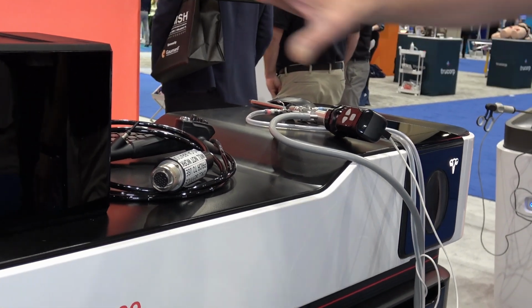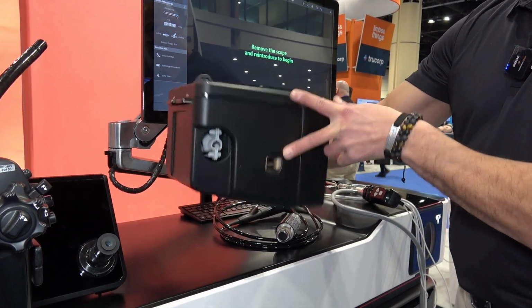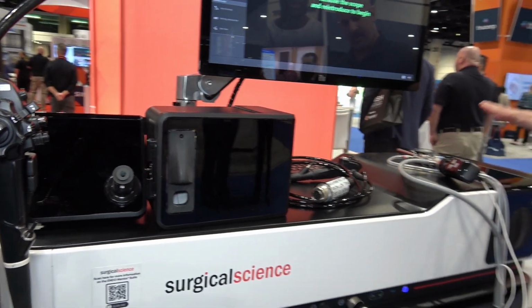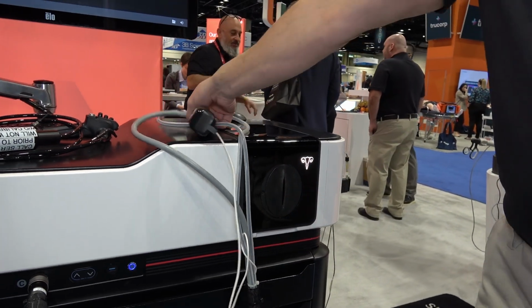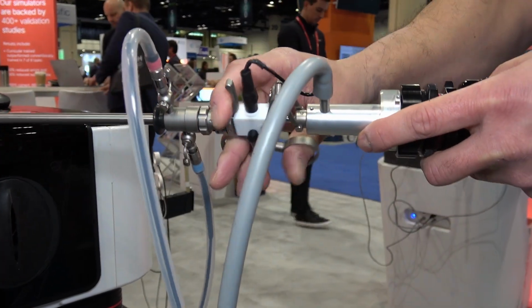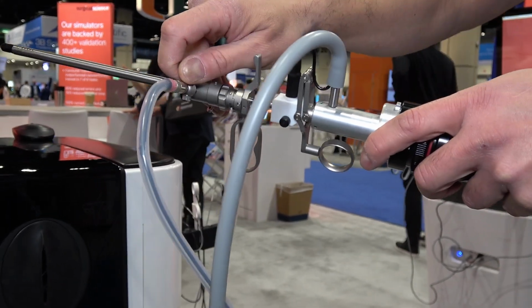What we do is change the cartridge. This is the GI, so this is the upper GI and the bronchoscopy. This is the lower GI and the colonoscopy. This is the endourology mannequin. And this is the hysteroscopy simulator, the HIST sim as we call it, using real medical devices that are modified for the simulation itself. So this is a resectoscope, and mechanically everything works, and you will see that on the simulator in a second.